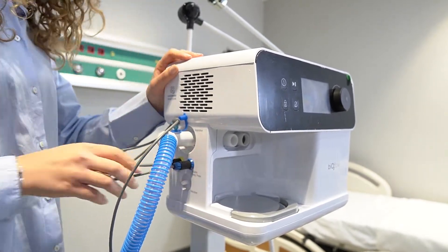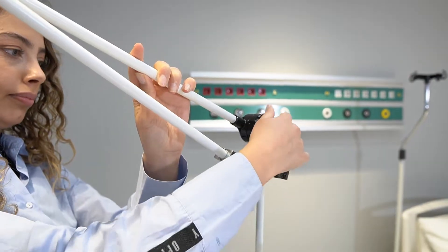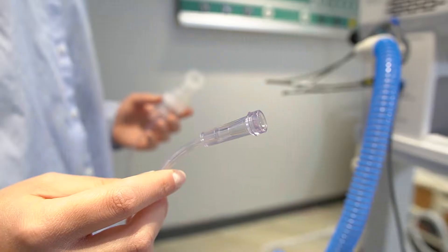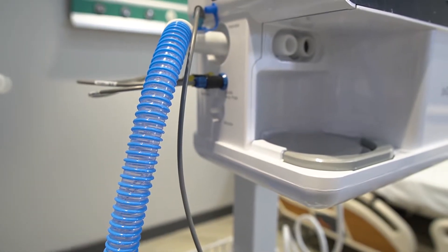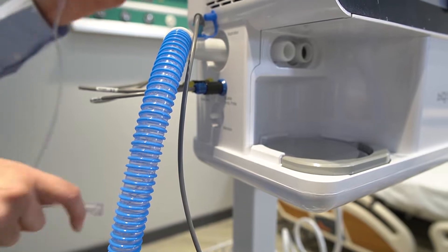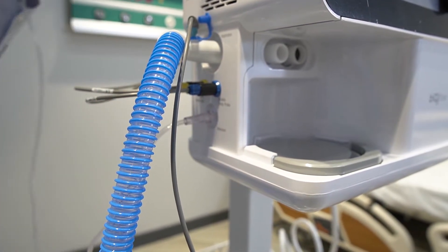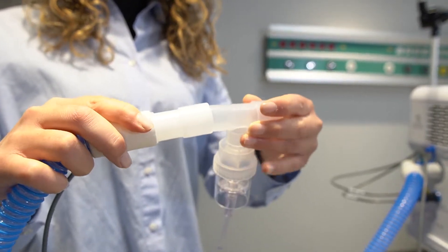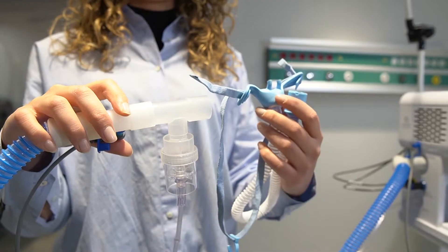The robotic arm is adjusted. The nebulizer set is combined as designated, and its hose is inserted to the nebulizer inlet of the device. One end of the nebulizer T-part is inserted to the patient circuit.